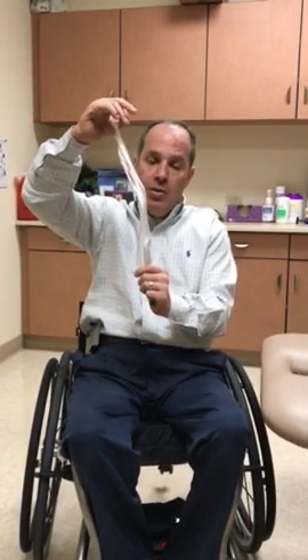What I recommend doing is shake that sterilized, purified water sachet down to the bottom. There is a seam on one side; the other side is flat. Put the seam side up, turn it just right back on itself, and once it's just folding over itself, push it and it snaps. Once you do that, the water drips out. Squeeze it to make sure the water is coming out, then rock it back and forth making sure all the water is touching the catheter. Hang it upside down for about 10 to 20 seconds to lubricate the tip completely.